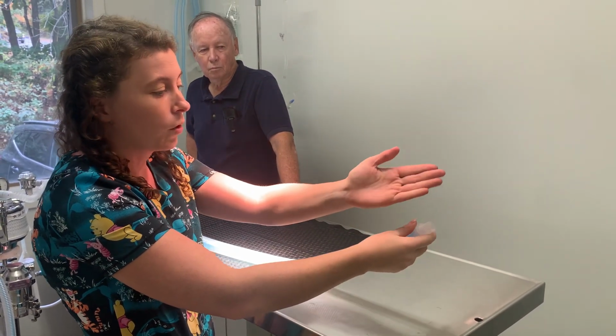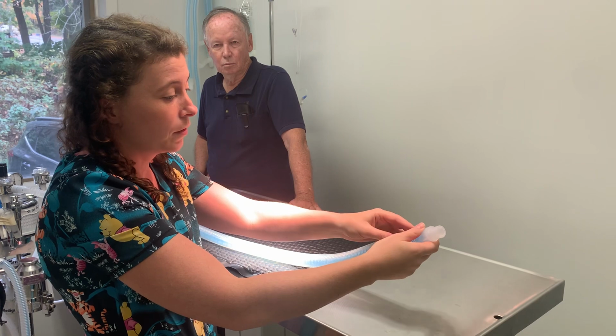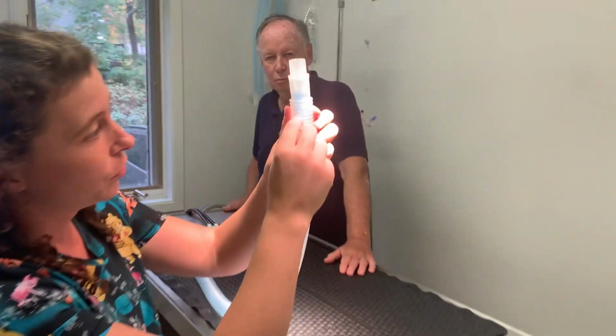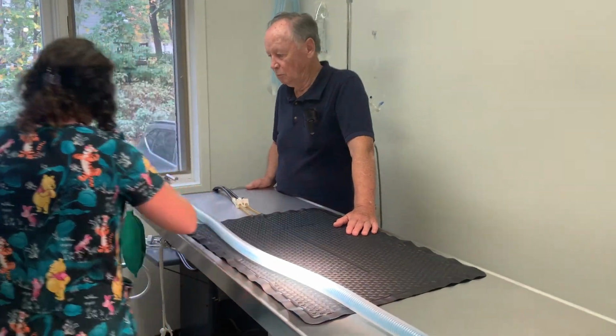And then the patient breathes out. It'll breathe out CO2, and it'll breathe out the extra or waste isoflurane, and it will come out the outside of this tube. See, there's like a clear part, so it comes out the outside. So it comes out the expiratory limb. So going up this way now.